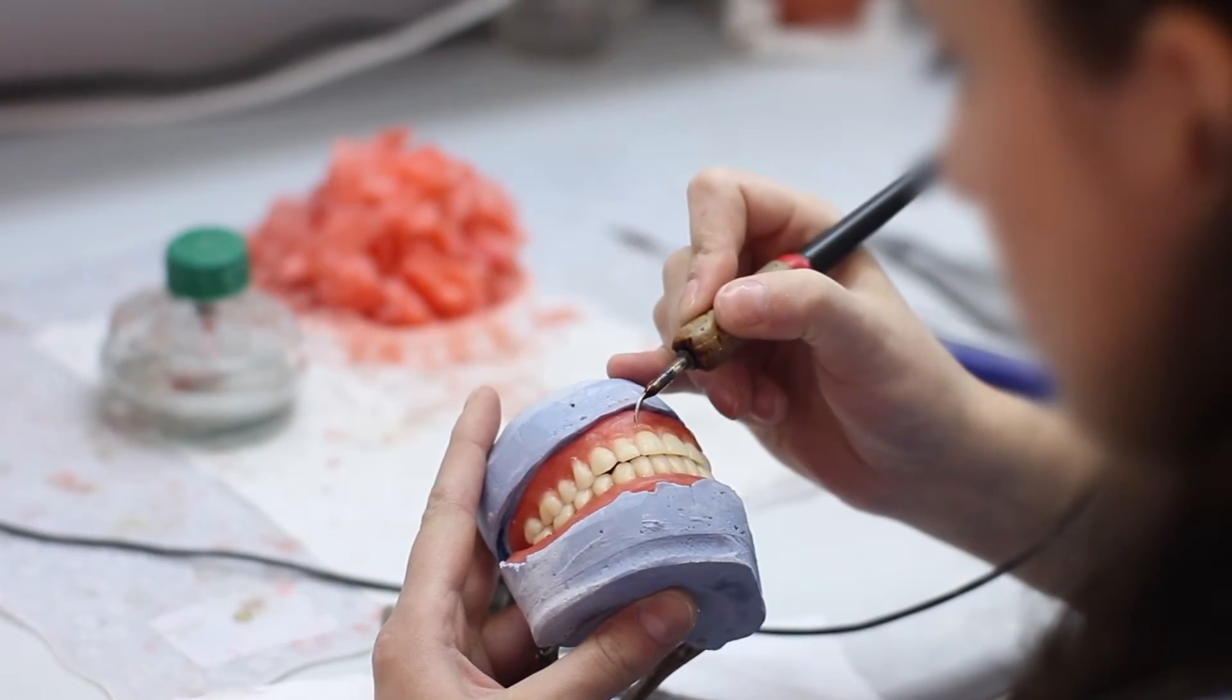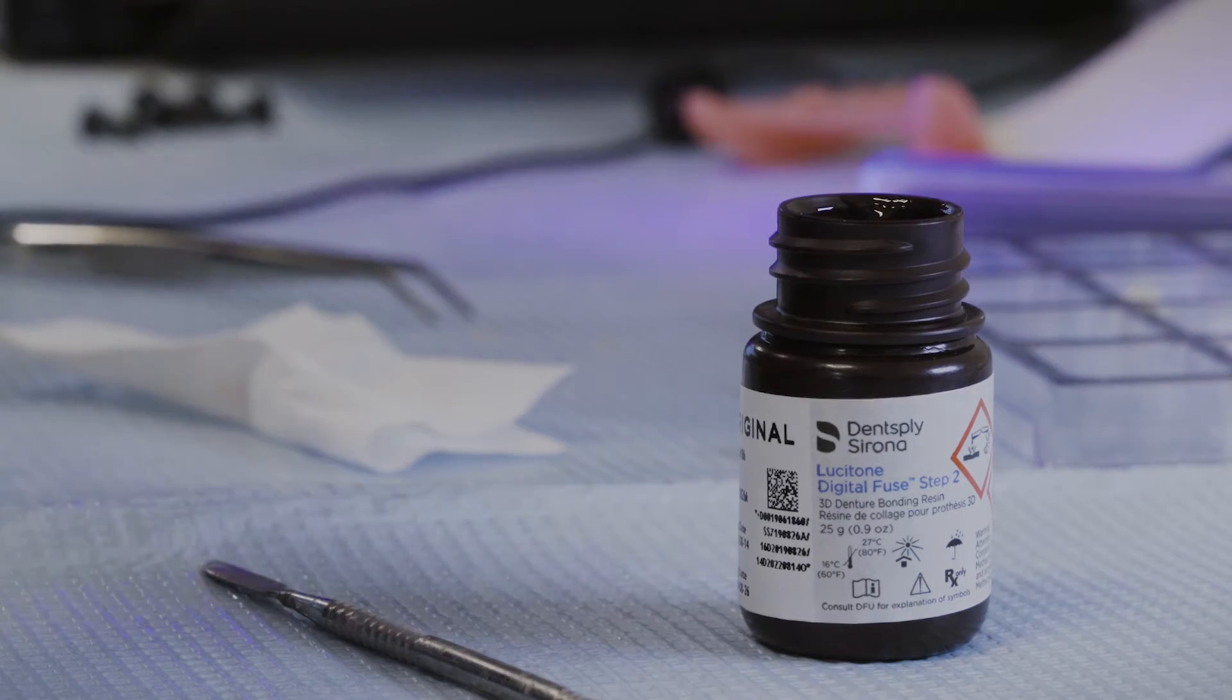You think of denture making as a craft, I need a craftsperson. And Carbon can do it.